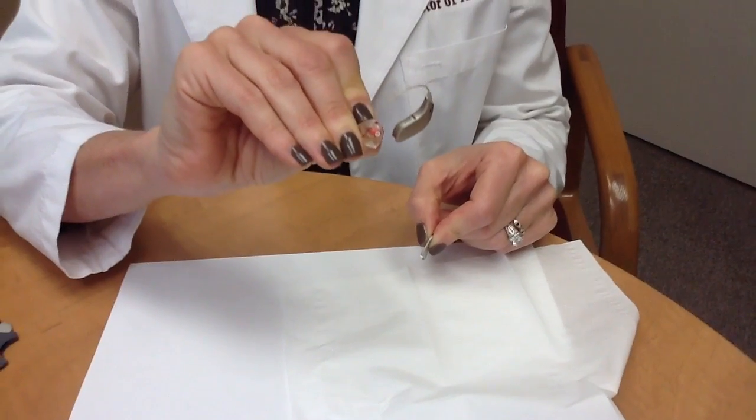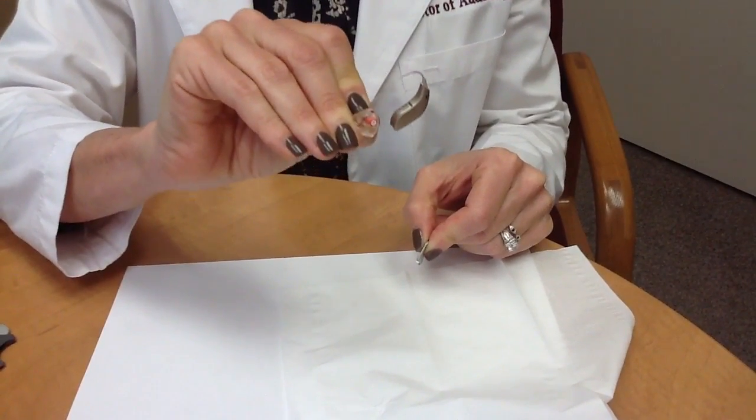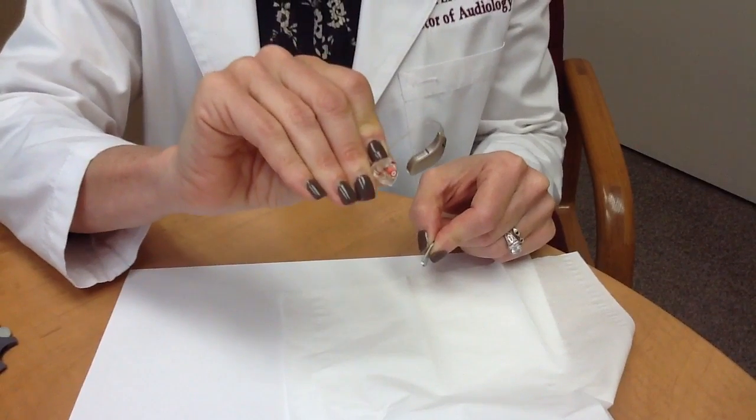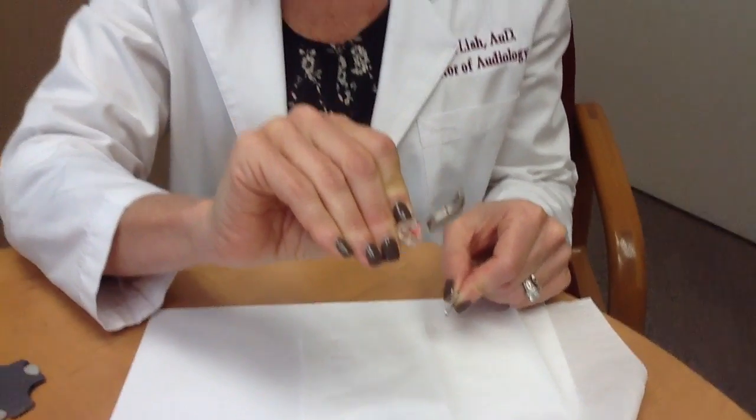If you've changed the wax guard and the hearing aid still doesn't work with a fresh battery, then it's time to see your audiologist. I hope this informational video was helpful. Thank you.